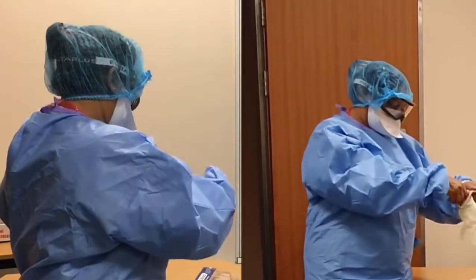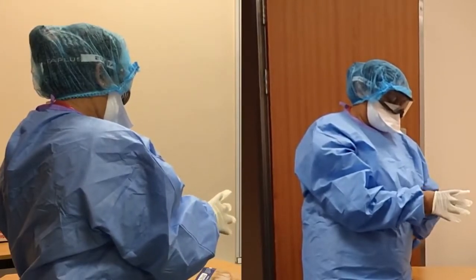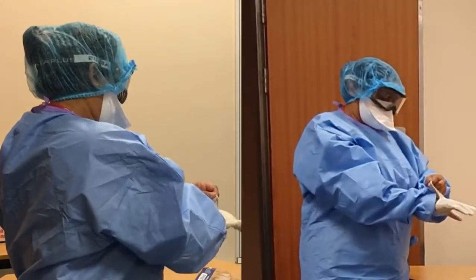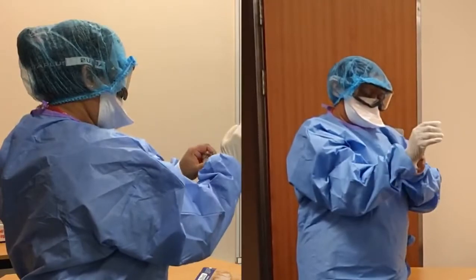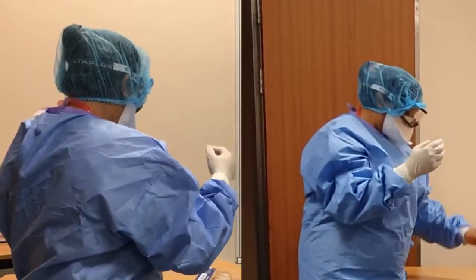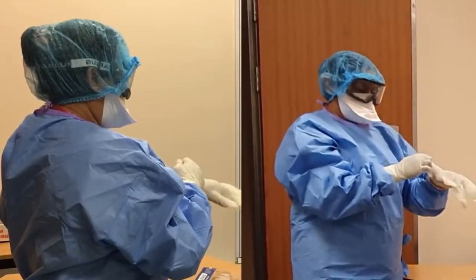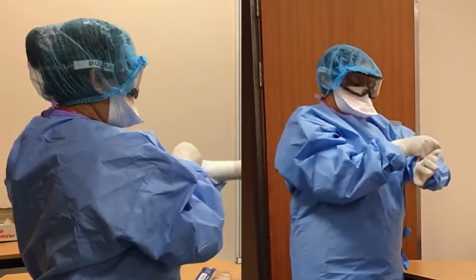The last thing is to put on a pair of unsterile rubber gloves. It's not necessary to double glove — if you're taking gloves off between patients, spray your hands and put on another pair. The cuffs of the gloves must go right over the cuffs of the gown so there is no gap between the gown and the gloves.